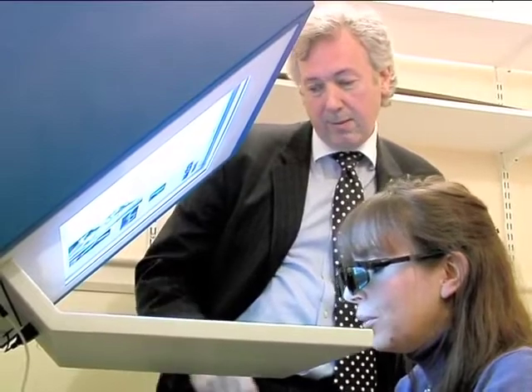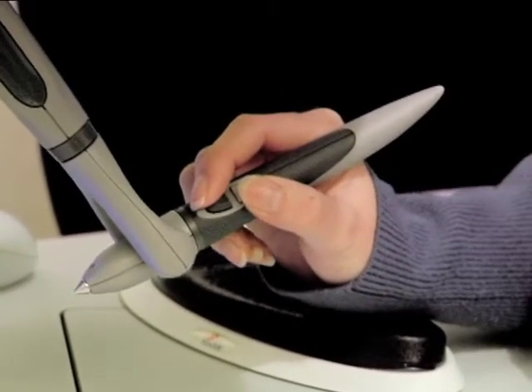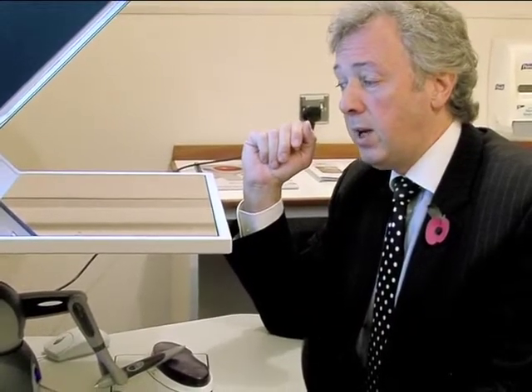This can be used for sinus surgery as well, although it's still in the early stages — practicing minimally invasive techniques to go up inside the nose and operate on the sinuses. They're also looking at starting to make an orthopaedic training model, but that's still in the pipeline.